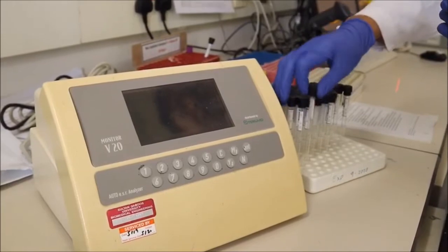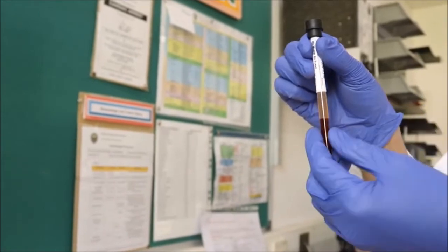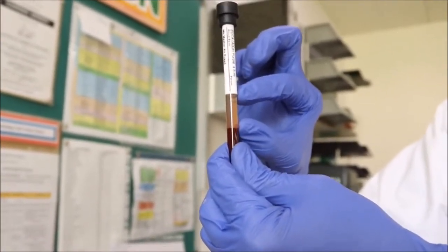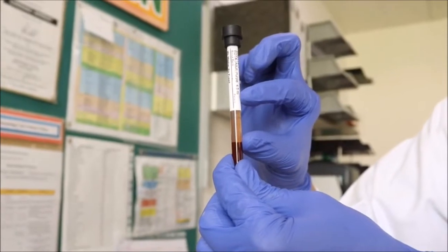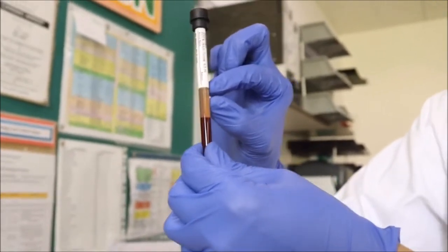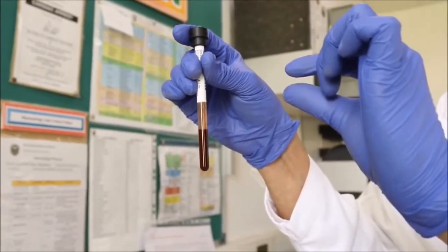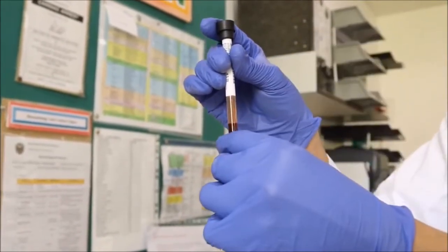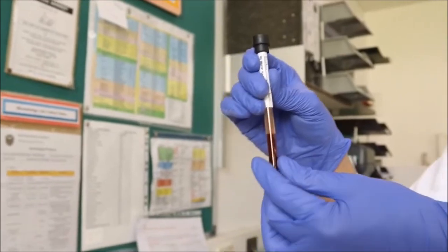Once it's finished, you will see the end product like this. You can see red cells are settled at the bottom, and it is the plasma layer that we measure, which is a reflection of the value of ESR, reported in millimeters per hour. So the higher the level of plasma, the higher the ESR. And the smaller the layer of plasma corresponds to an ESR value that is also lower. So basically, it's directly proportional. Okay? So that is the principle of this test. Very simple. Again, it is non-specific because there are other conditions that affect this test.